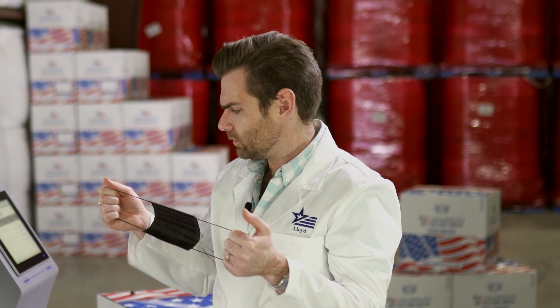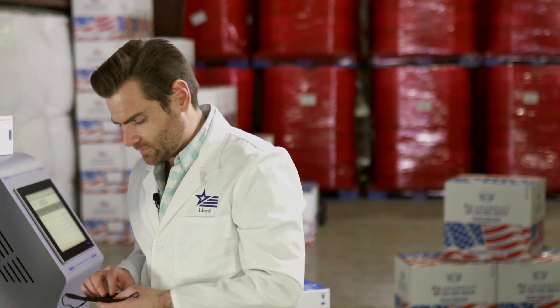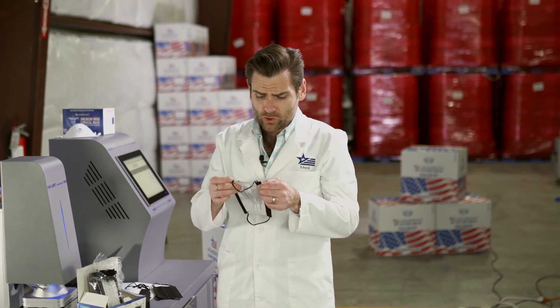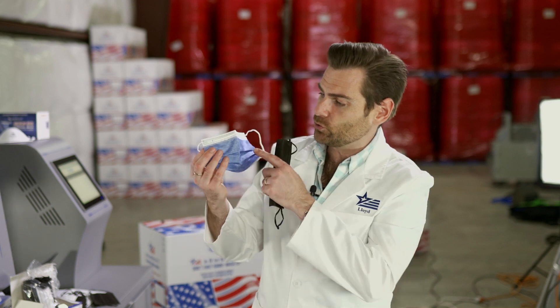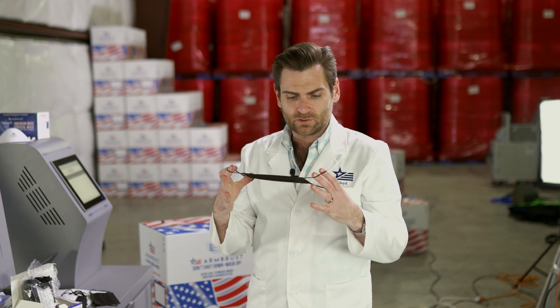Two of them broke? I'd say some of these might break, but it's not going to be the end of the world. This is a very, very thick mask — I'm surprised the airflow is actually so low. It's a pretty good structural mask, just a little thicker than I like to see. We like our mask to be about 25 GSM on the outside — that's how we make our masks; you can kind of see through the top layer. This one is too thick, probably like 50 or 60 GSM, which is just going to decrease breathability.